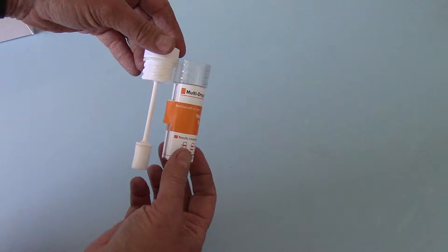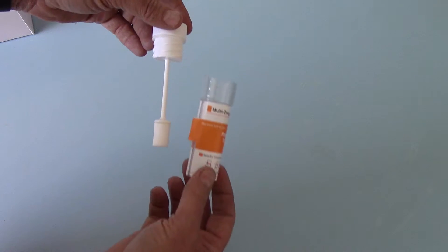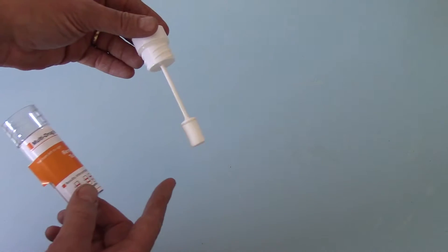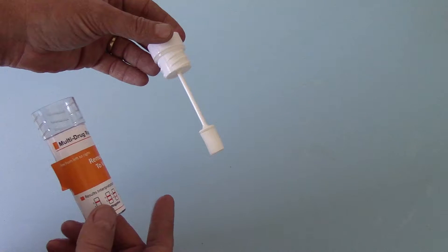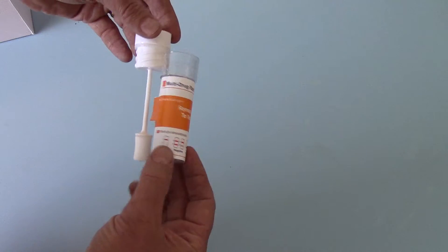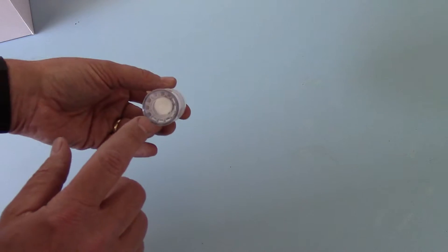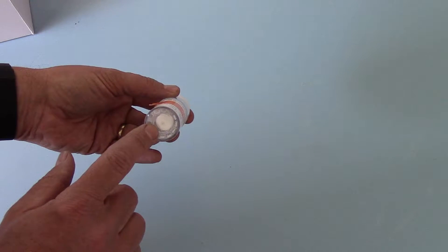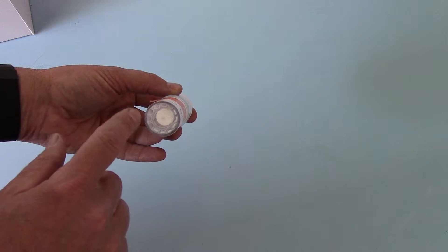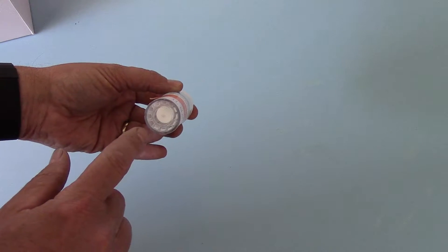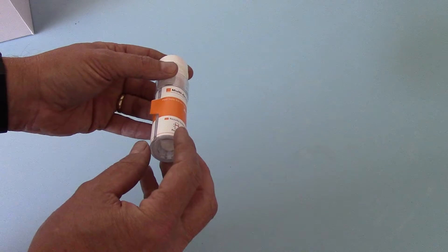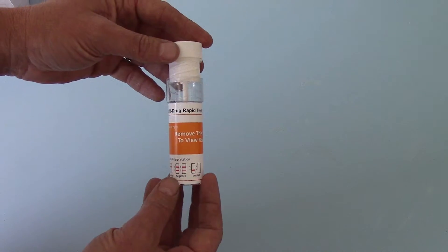If you just put them side by side, you'll see. The idea here is that this sponge, when saturated with saliva, becomes very soft and floppy. And by connecting these two together and locking them down, the sponge is squeezed into this bottom section, discharging the saliva to run the saliva test membranes that are around the outer element of this test.